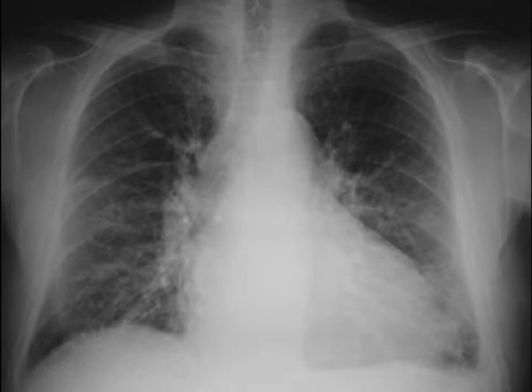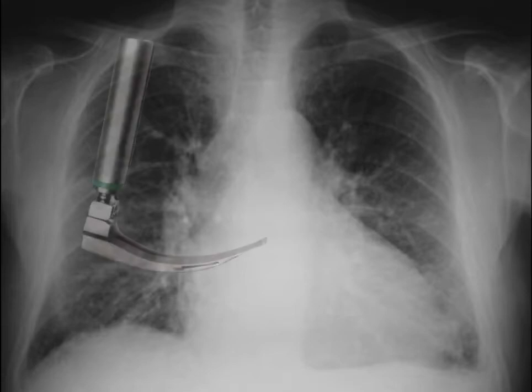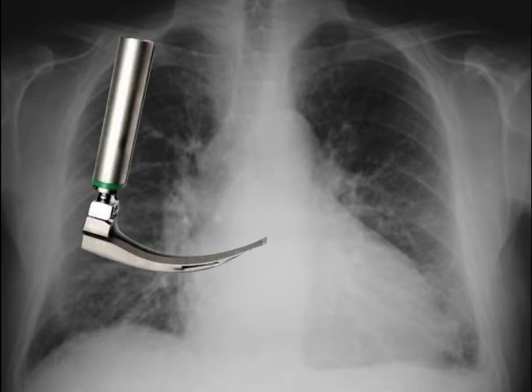It all starts with a case of respiratory failure. This is a mid-60 year old who presented with a history of COPD with shortness of breath. Based on this chest x-ray, they were presumed to have congestive heart failure. The patient was given Lasix and placed on BiPAP as they were quite severely dyspneic. Unfortunately, on BiPAP, the patient continued to deteriorate. ICU was called.